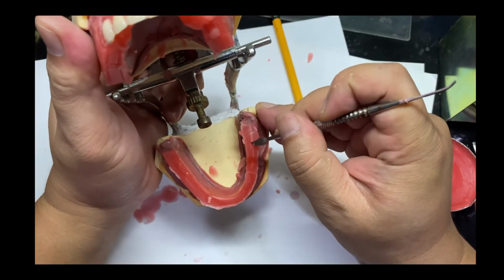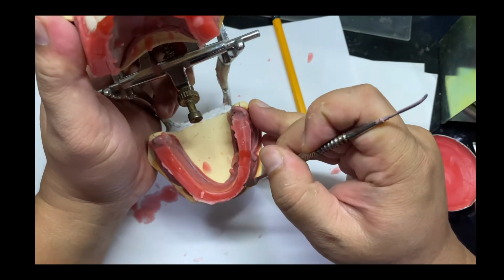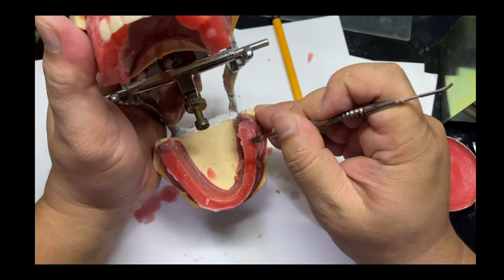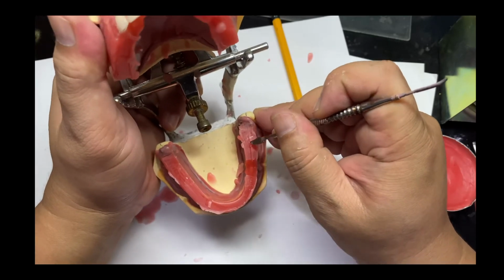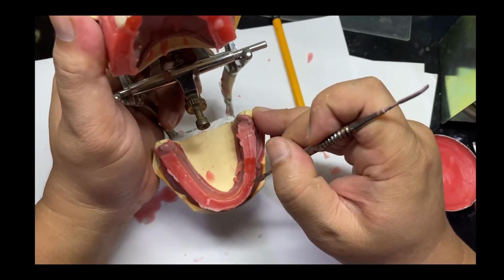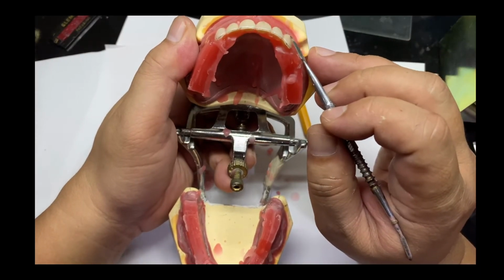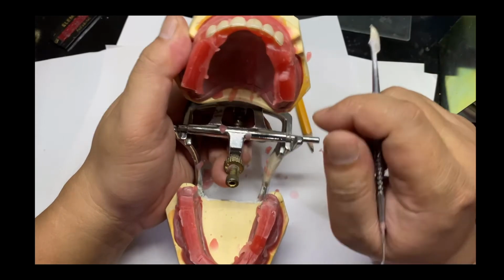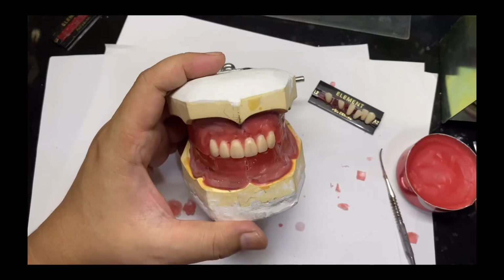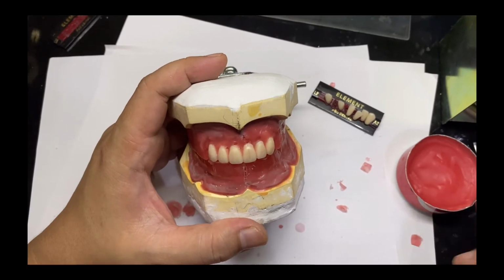The distal surface of the canine follows the neutral zone line. So it will all depend, after setting the lower anteriors, if there's a need to adjust the upper canine. That is based on the overjet overbite relationship. So let's begin with the lower anteriors.